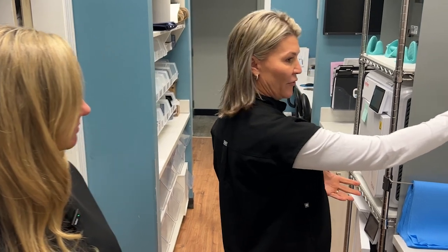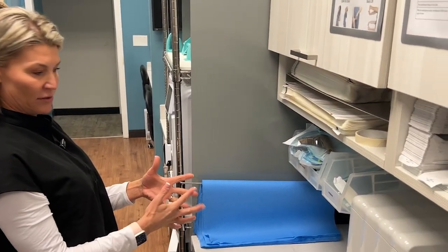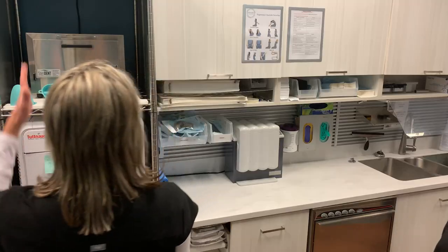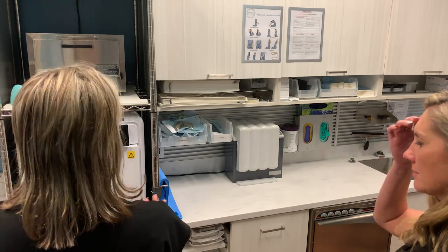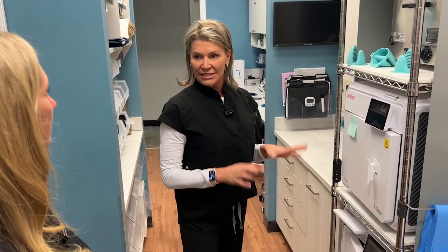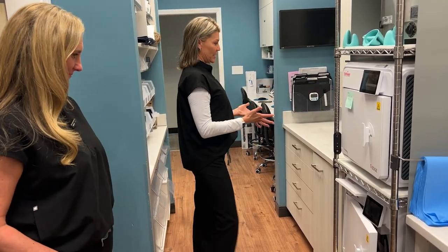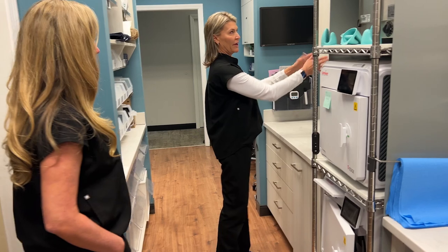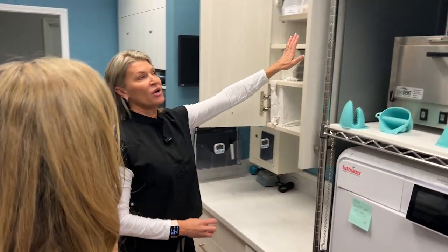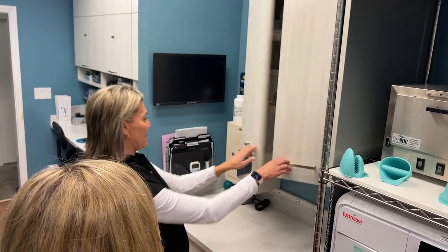We've got an area here for bags and tape so that we can bag and/or wrap our instruments here. And then autoclave. This is our autoclave rack, and it is restaurant-quality stainless steel. Again, keeping from dirty to clean, this being our clean area, we've got another pull-down and plenty of storage for all of our clean cassettes in this cabinet.